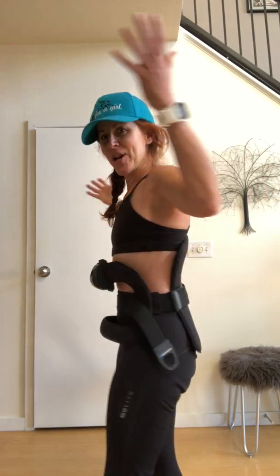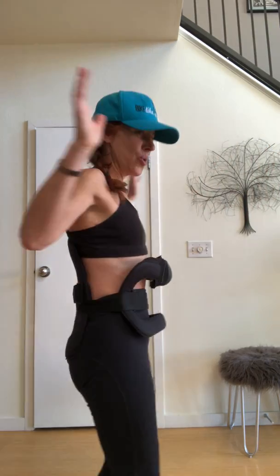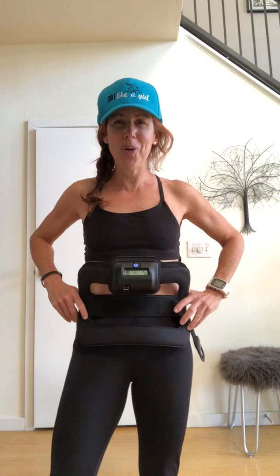I kind of feel like the old Madonna costumes she wore on her tours years ago. Hopefully this is going to help the fusion happen more sustainably and quickly, so I'll let you know how it goes. Thanks!